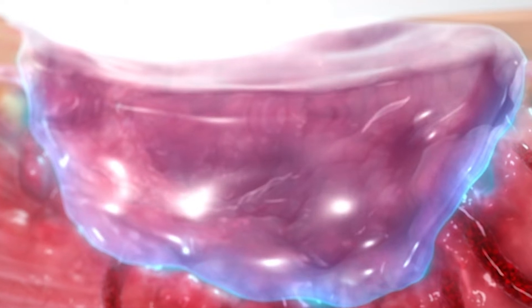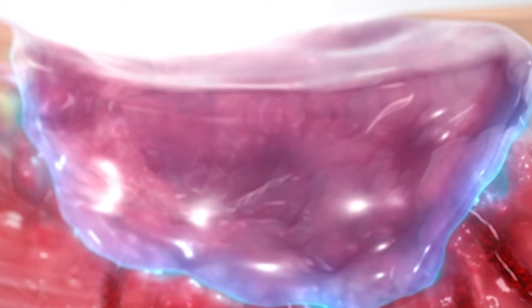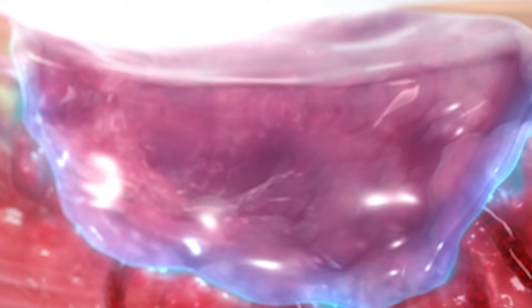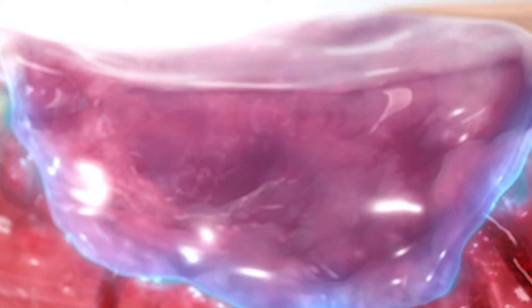This three-dimensional wound-conforming matrix provides a lens-like seal and a potentially clearer field of view after application.